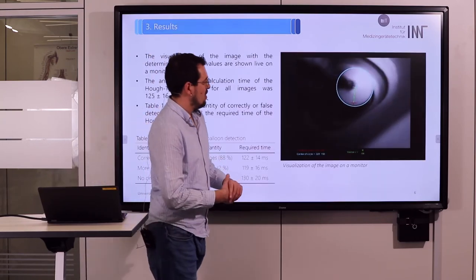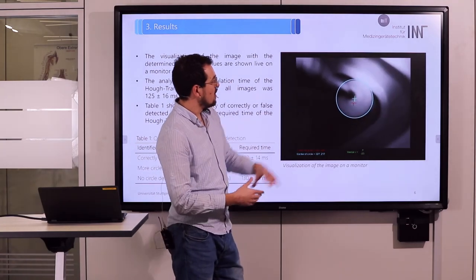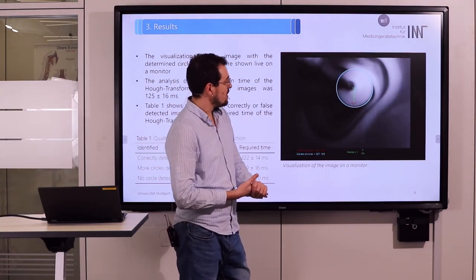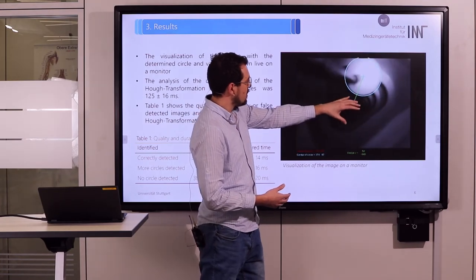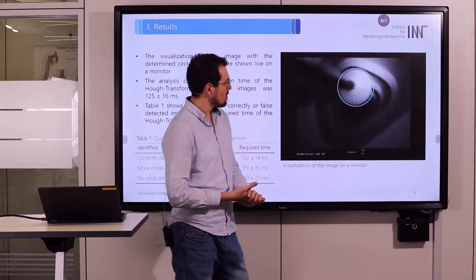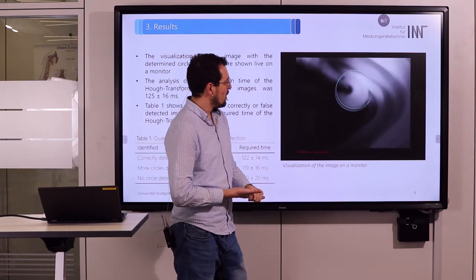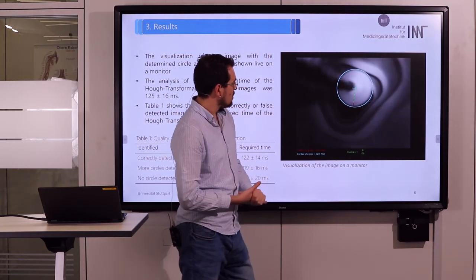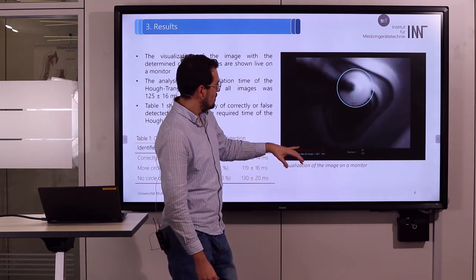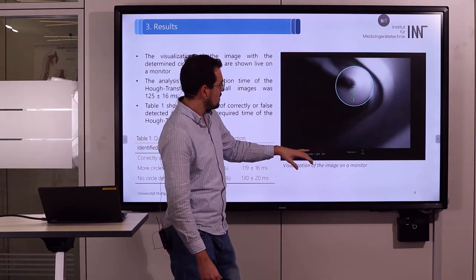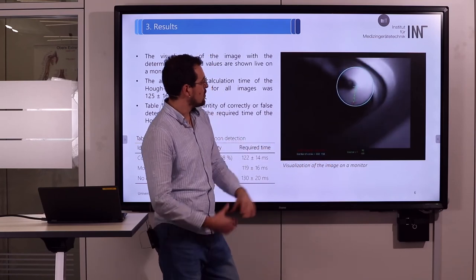For an example video you can see we have identified the balloon as a circle and found the center point. We can see in green the calculated vector to a specific point. In addition we show the user the calculated vector and the center of the circle.